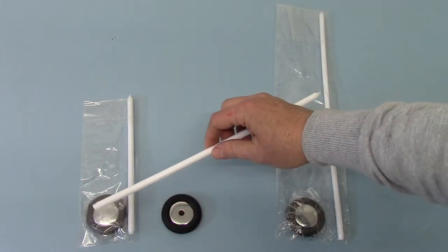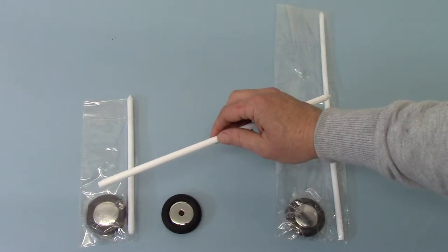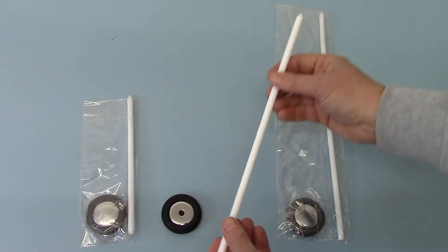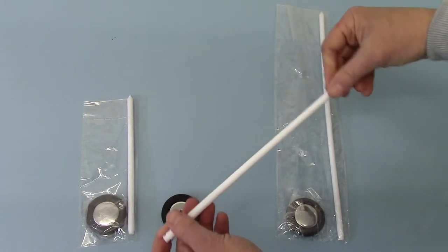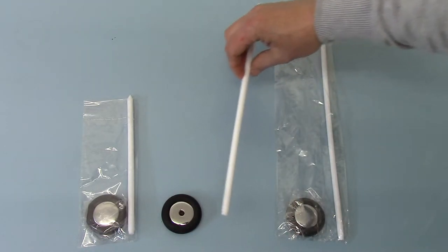Now, this is important to note on these because with a lot of the cheaper versions of the reflex hammers in this design, you'll find that the hammer handles themselves are far too thin or too rigid, and it's got to be of a good quality vinyl. We've sourced these very carefully.